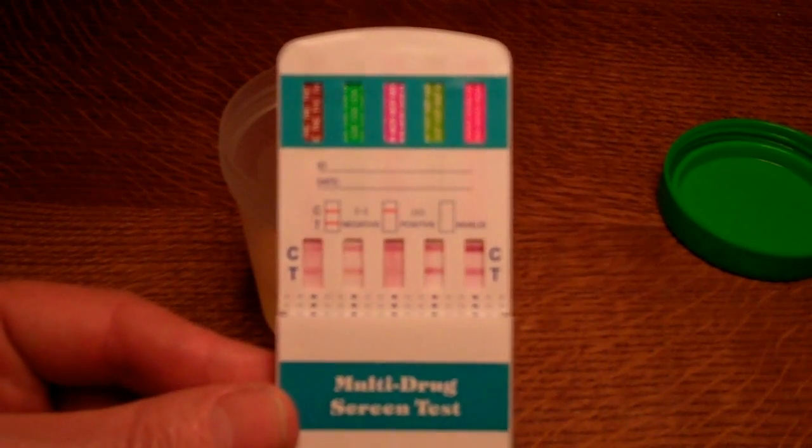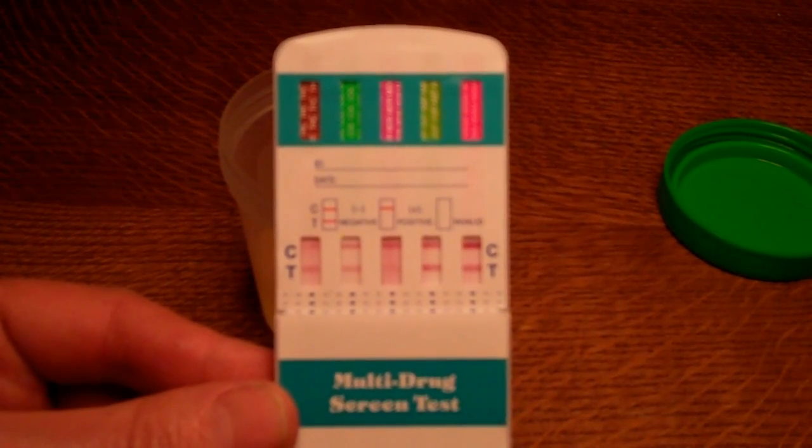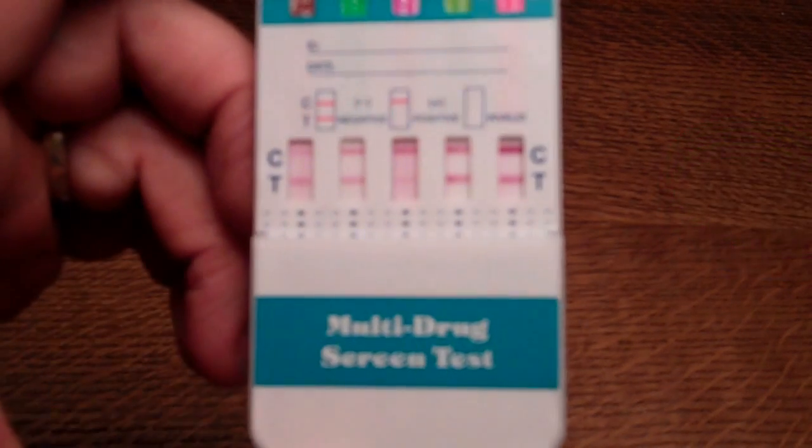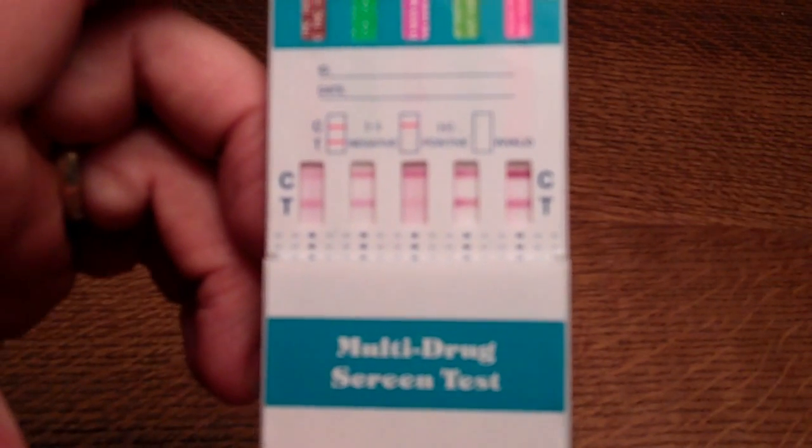So what I'm going to do now is just switch camera off and then come back and show you this test panel as it appears at the ten-minute mark. Okay, so here we are back at the ten-minute stage.